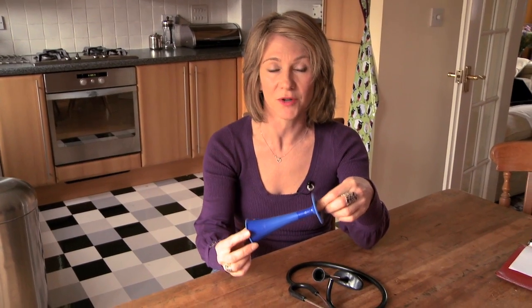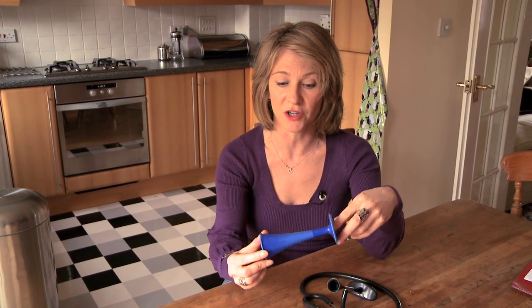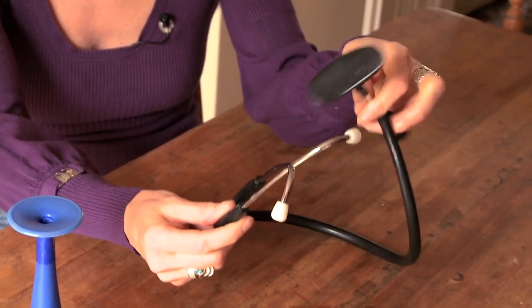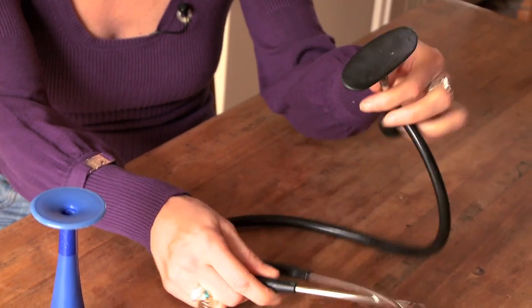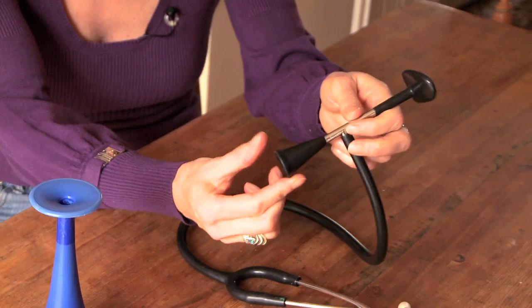This one's in plastic. They also come in metal and wood. They come in varying lengths — this one is the shorter version. This one here looks more like a stethoscope. It's got two ear pieces, but then it has the bell trumpet at the end which goes on the mother's abdomen.